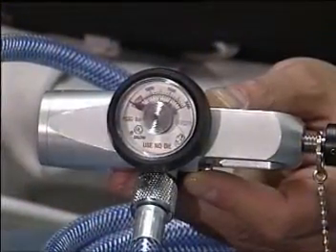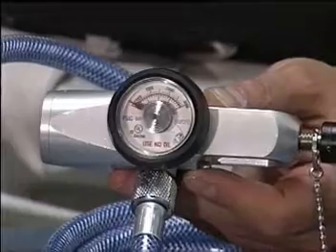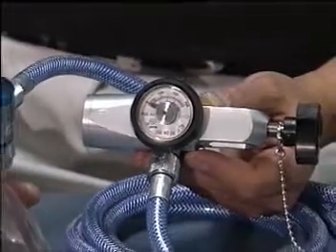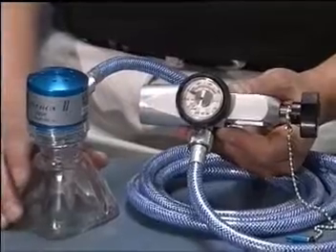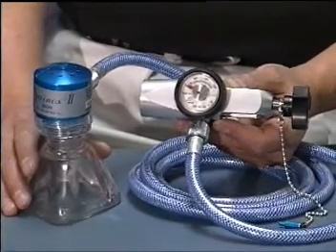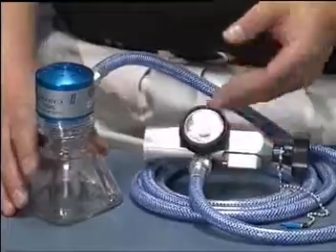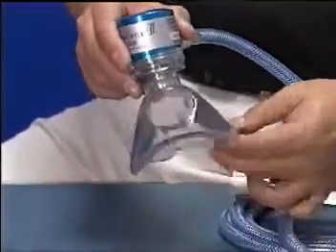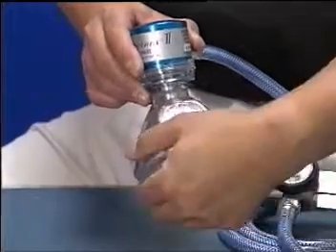The Equinox II demand valve is designed to provide 50% oxygen and 50% nitrous oxide analgesic gas on demand to a spontaneously breathing patient. The small size of the device will comfortably fit in the patient's hand. The mask can be rotated 360 degrees to accommodate pain relief from any position.